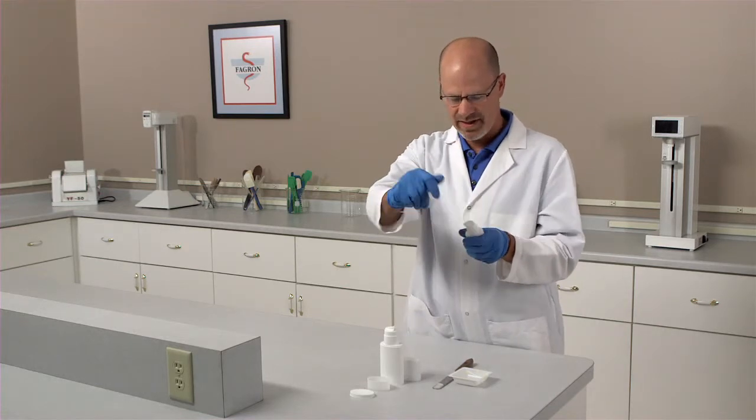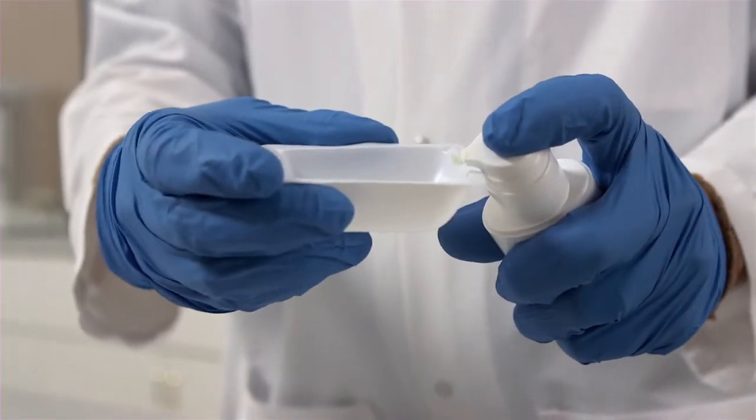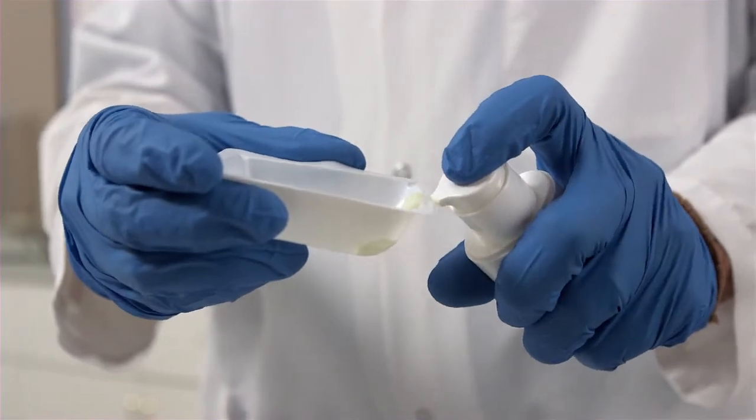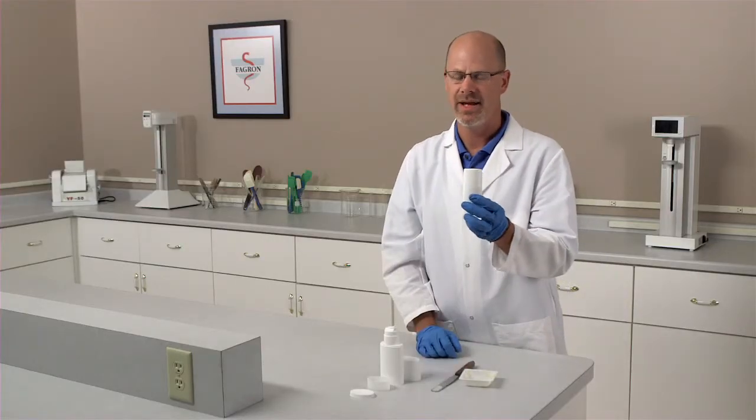The next step is to prime the device, and you'll simply prime it a couple of times. Once the device has been primed, it can be capped and be dispensed to the patient.